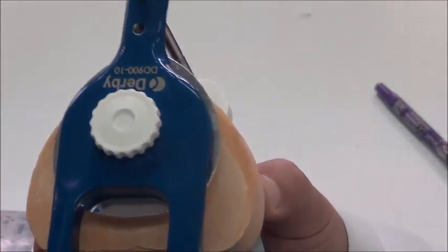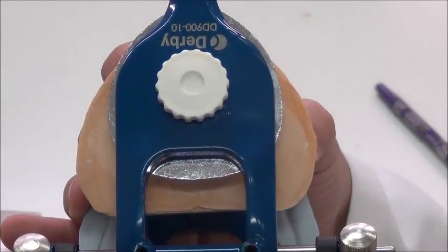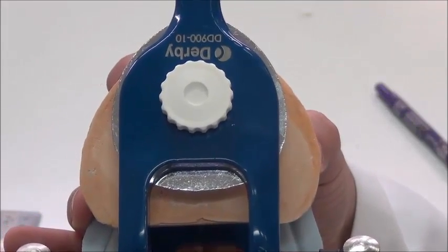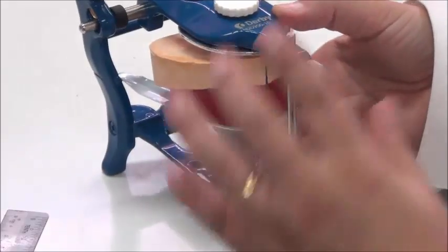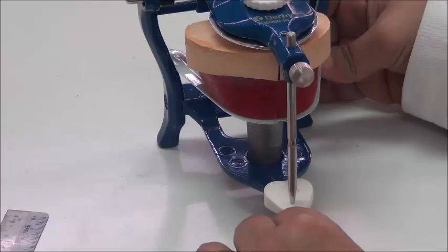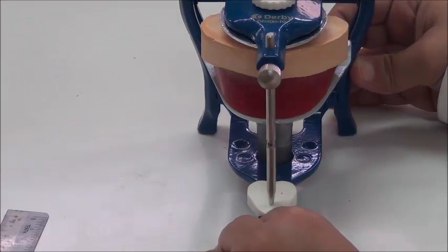And as well, when I'm looking from up here, the cast is shifted slightly to the posterior to accommodate the big cast that we have for this patient. So now this is fixed. I'm sure that now this is the position I want to mount on. So this cast is totally centered inside this articulator, and I'm now ready to do the mounting step, which you will see in the second video.